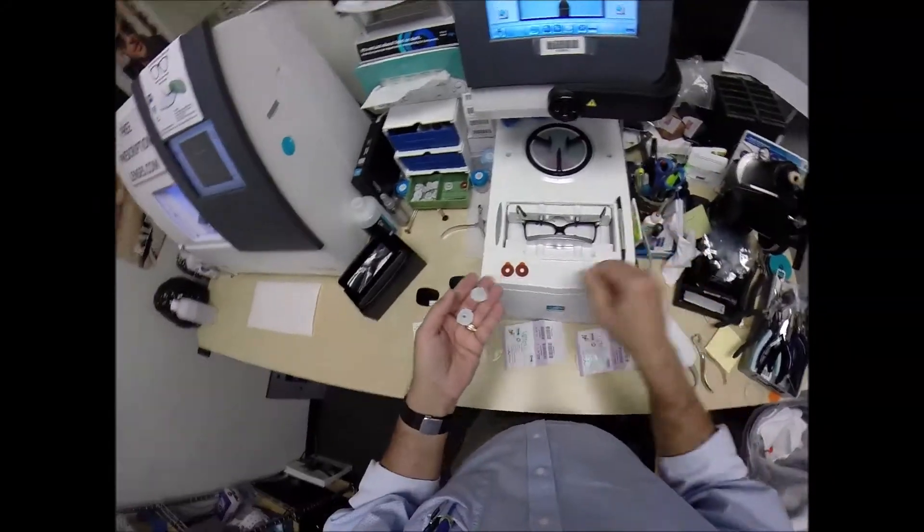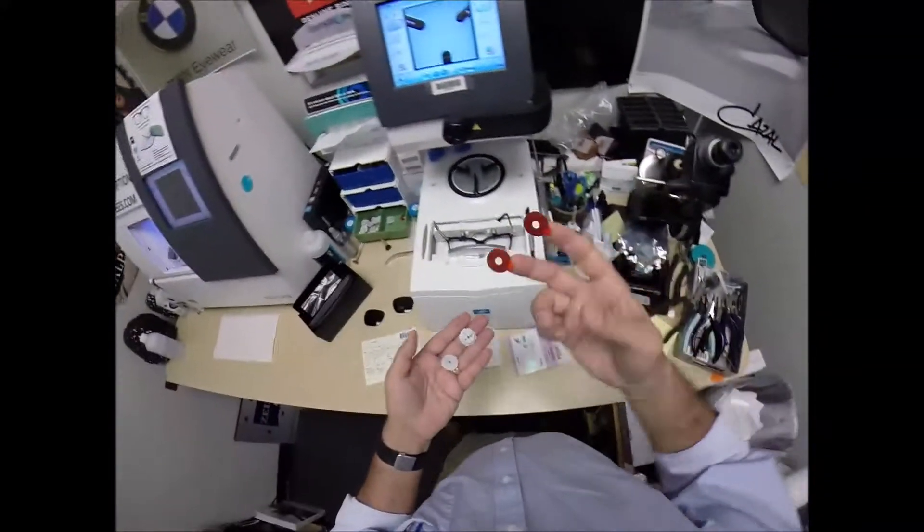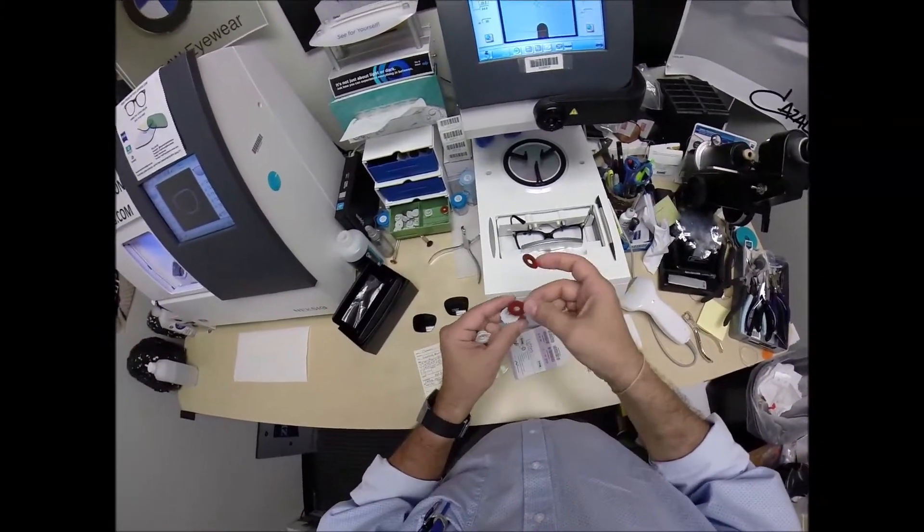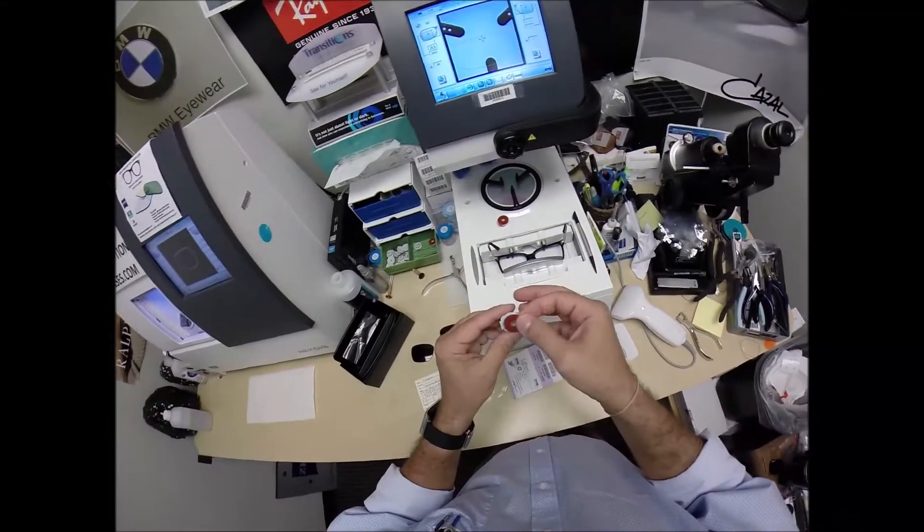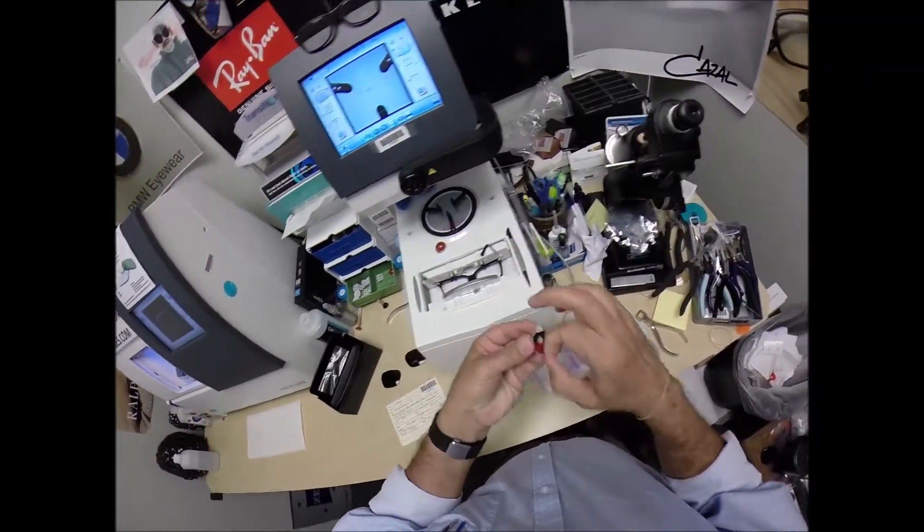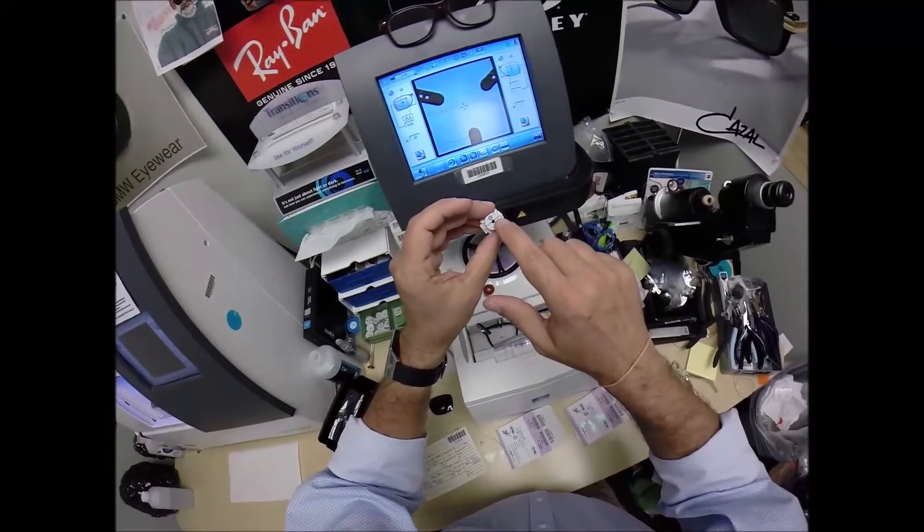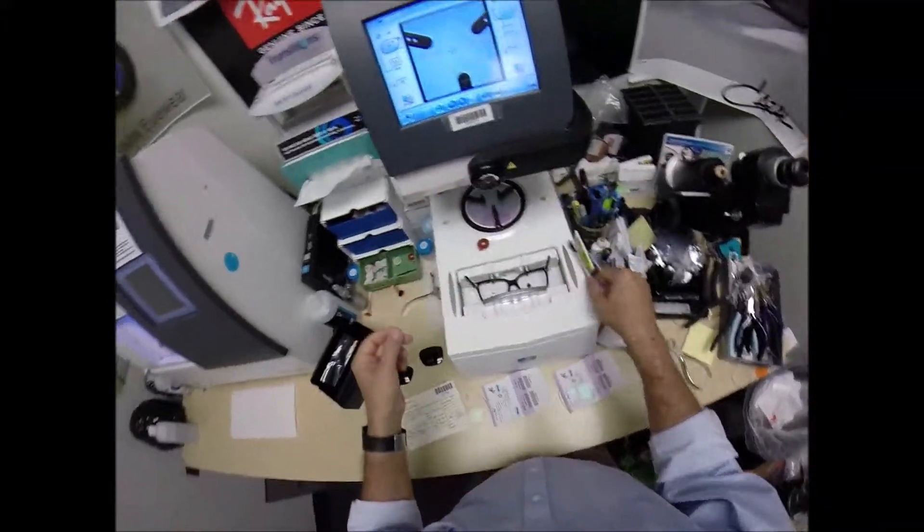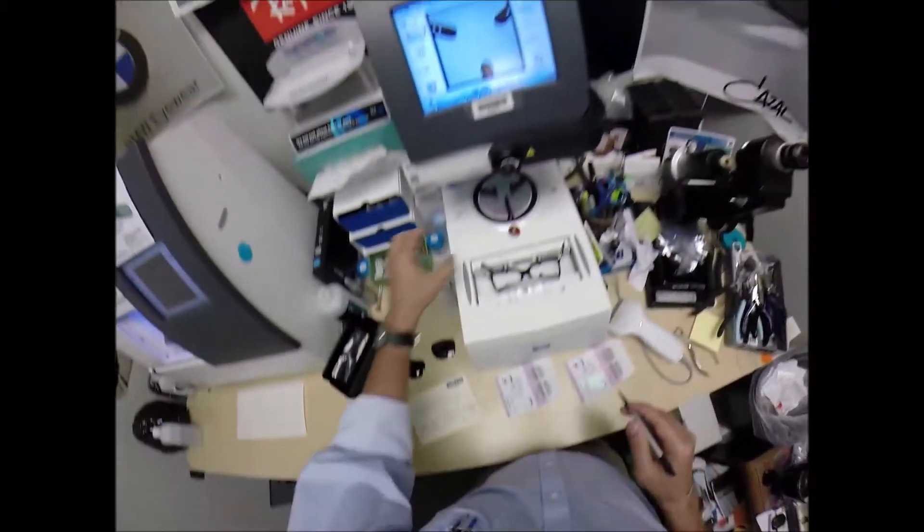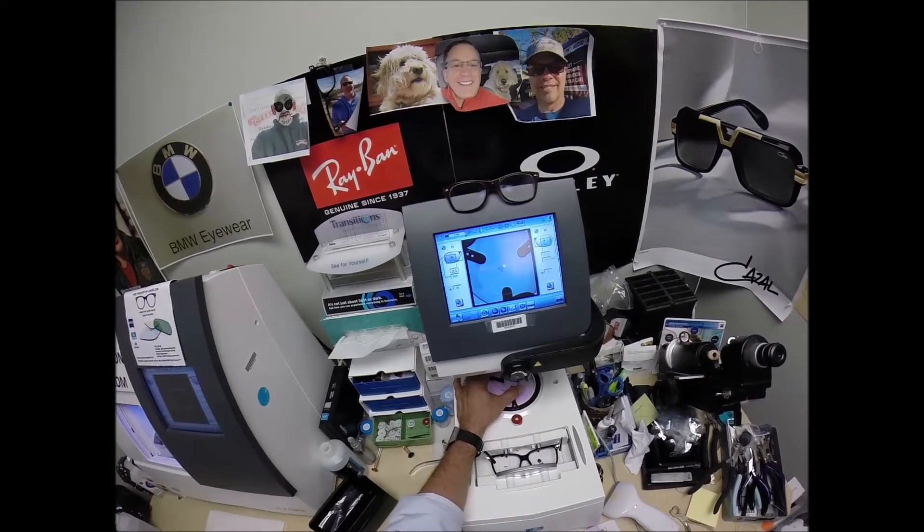Let's move back to the right. I got two double-sided adhesive stickers. The black side is the sticky side. Stick that one on the first block. Do the same thing now for the second one. Pull the paper away to make the black side sticky. Now, the magnet is going to do its job its first time. That silver button on the back is a magnet.